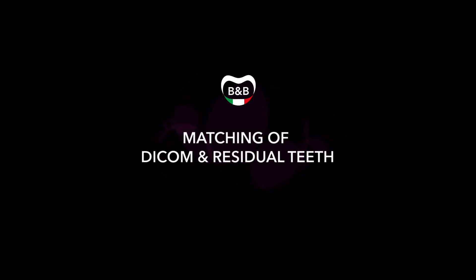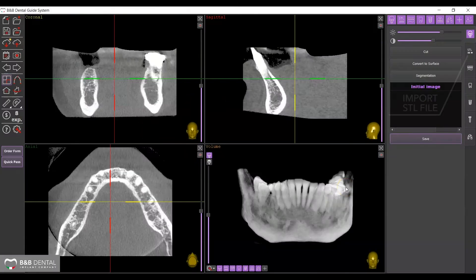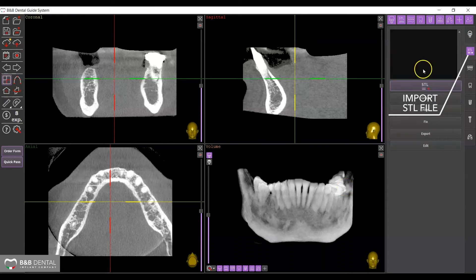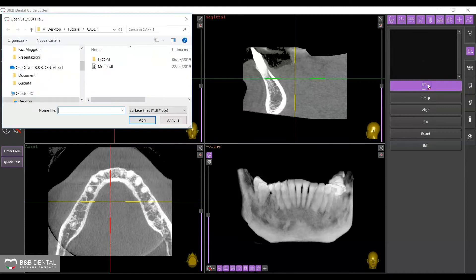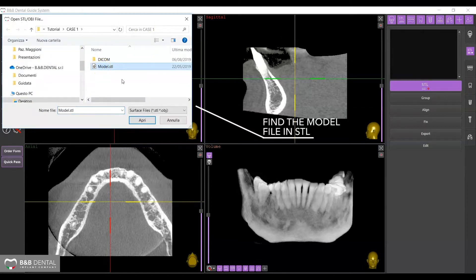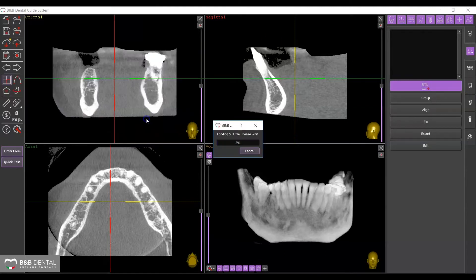The panel on the far right includes all the tabs necessary for the step-by-step creation of a template. Click on the corresponding tab to import an STL file and then on the Add STL icon. Search your computer and select the file corresponding to the treated patient by selecting Open.